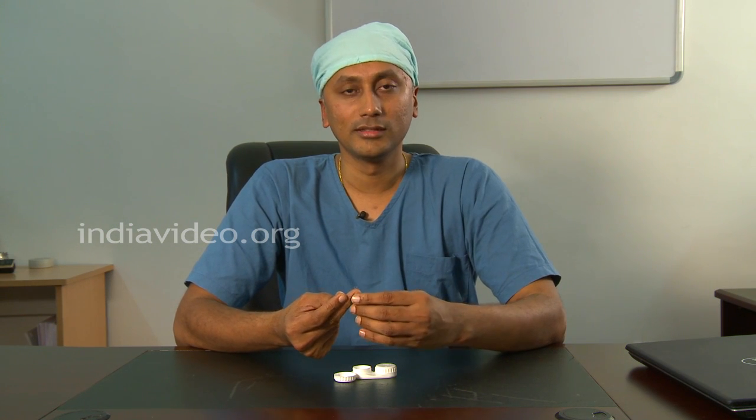It is available in blue, green, brown, and shades of brown. Such a wide array of colors is a good option for models, actors, etc.